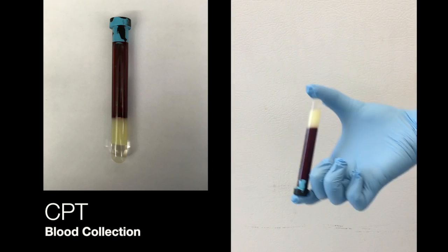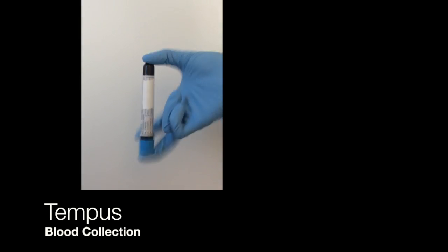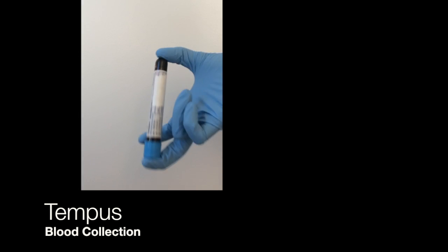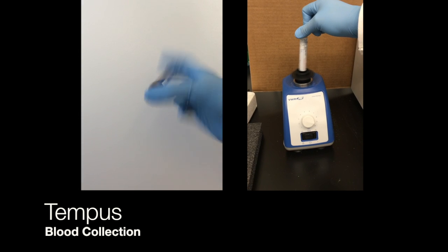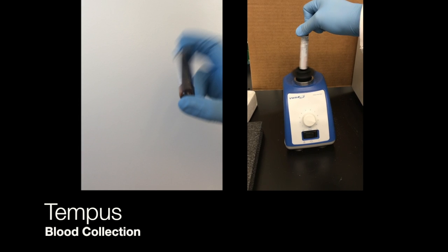For CPT tubes, invert 10 times. For Tempus tubes, shake vigorously for 30 seconds, or if you have a vortex available, vortex for 30 seconds. Remember to record the time of blood collection on the requisition form.